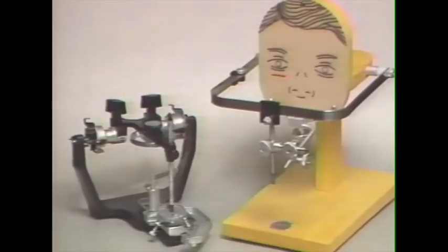We hope this videotape is an aid in understanding the advantages of using a face bow and a semi-adjustable articulator. The Hanau Spring Bow and Modular Articulator provide simple, easy-to-apply instrumentation for simulating jaw movement. Their wider application will result in prosthodontic restorations which are better adapted to the individual patient's mandibular movements and fewer chairside adjustments.